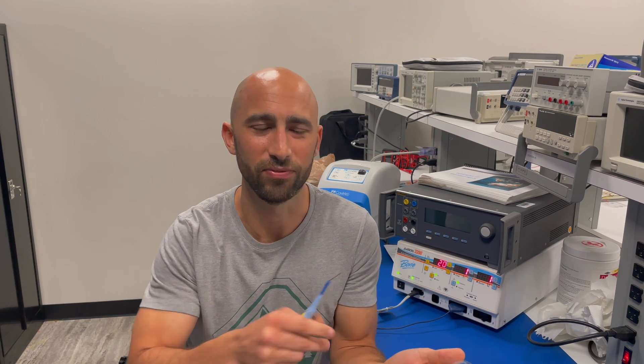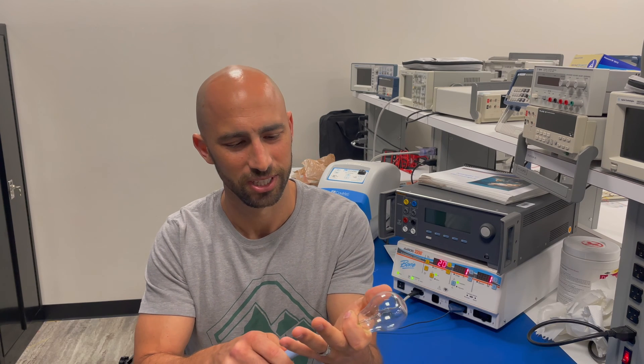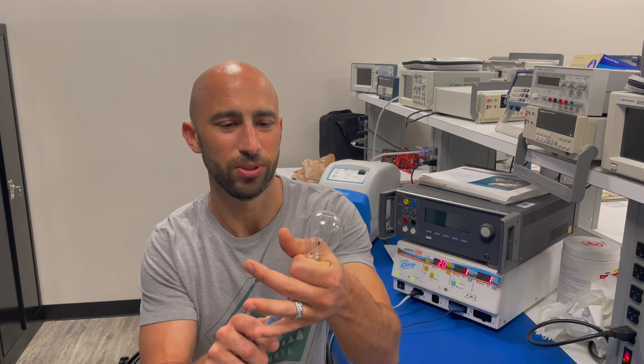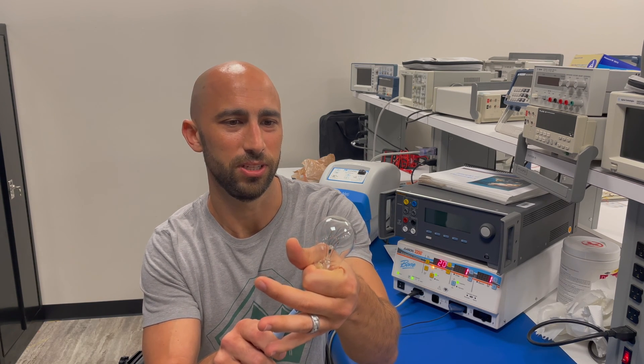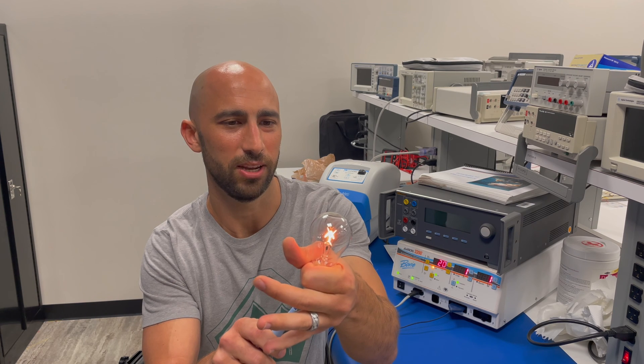I'm going to be very careful — well, maybe I've forfeited that idea of being careful because I'm hooked up to an electrical surgical generator. But you want to be very careful if you were to try this. Just don't try this, actually. So what I need to do is make sure I am in good contact with this light bulb, and you'll see I'm able to light that up.